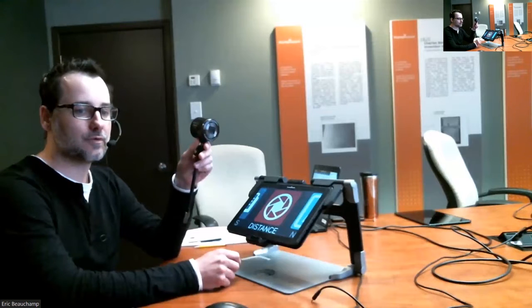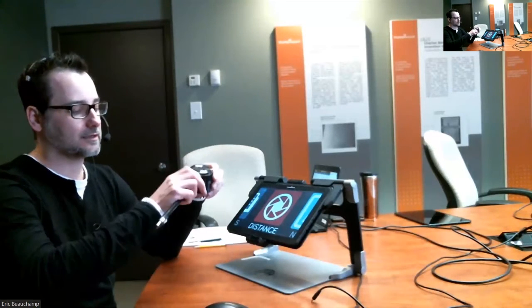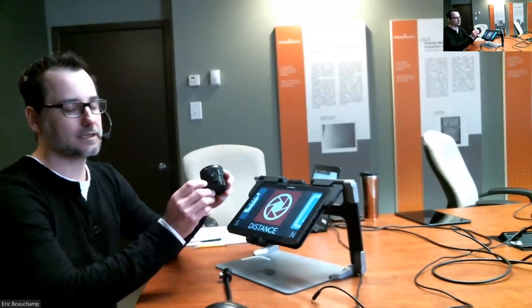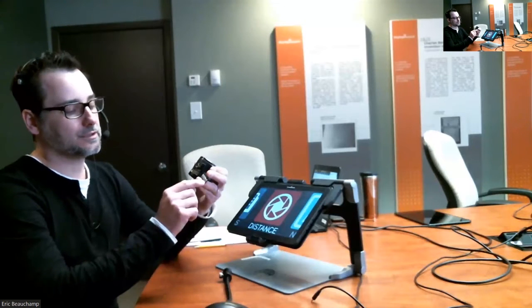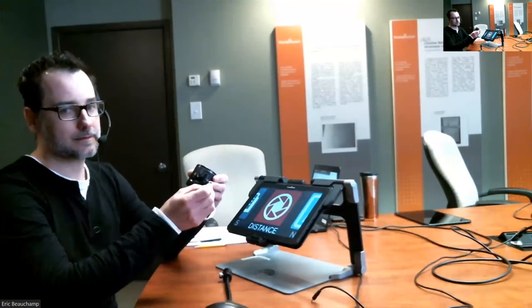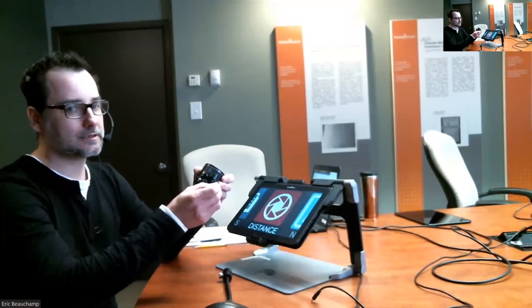But if you do have one and you don't have the distance application, what you can do is unscrew that camera from the gooseneck, and there's a little door right underneath the camera. You can open that, and you're going to have to have good eyes, but you can see the name of the network of your camera, which is going to be something like Pix Pro _SL10.